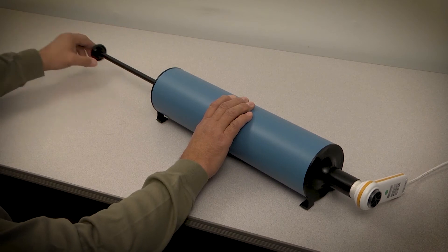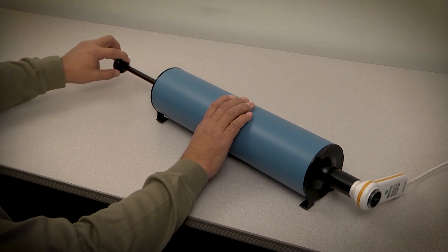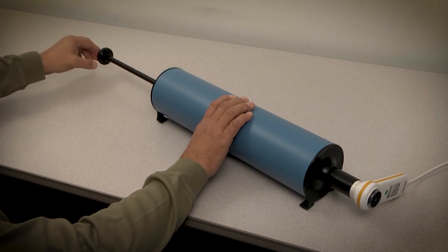If you do not get a passing range of plus or minus three percent, contact MIR customer support.